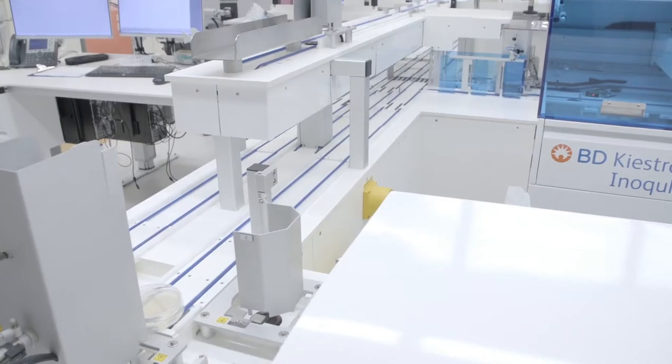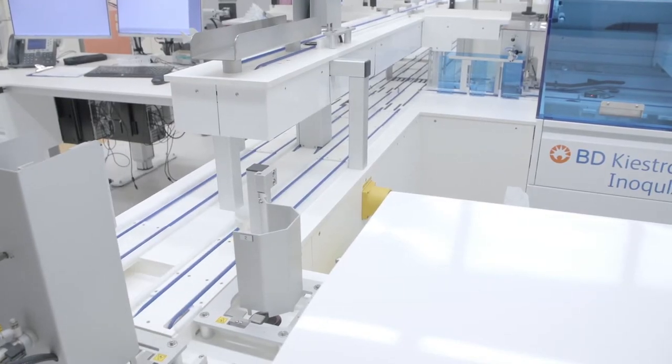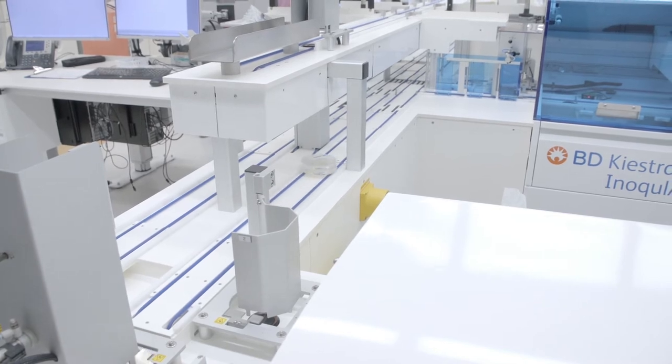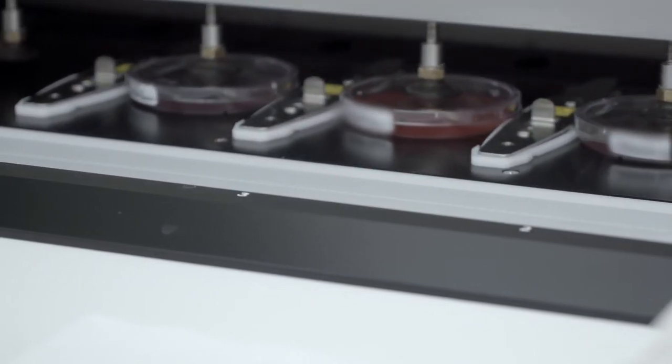The high level history of COVID testing here at Houston Methodist, we really started following the progression and spread of COVID-19 in China back in January and started making preparations so that we were prepared as a laboratory to be able to do testing for COVID in a very rapid fashion.